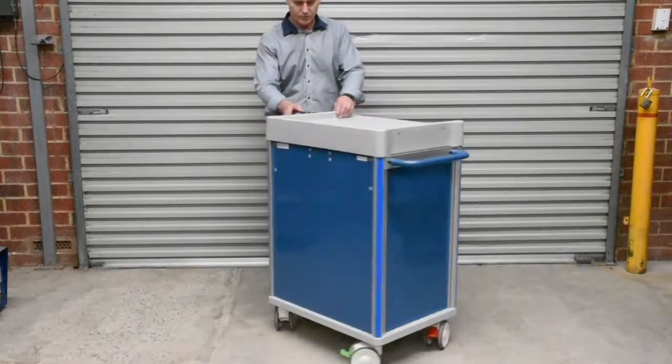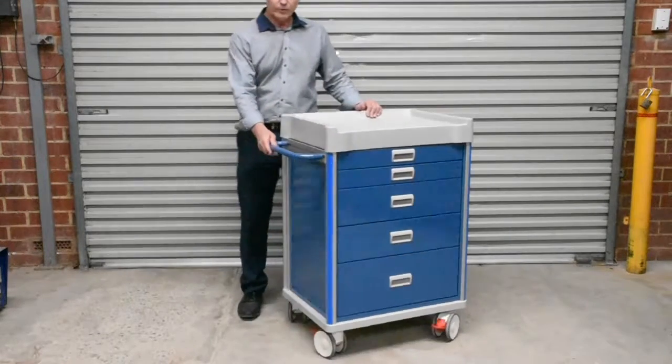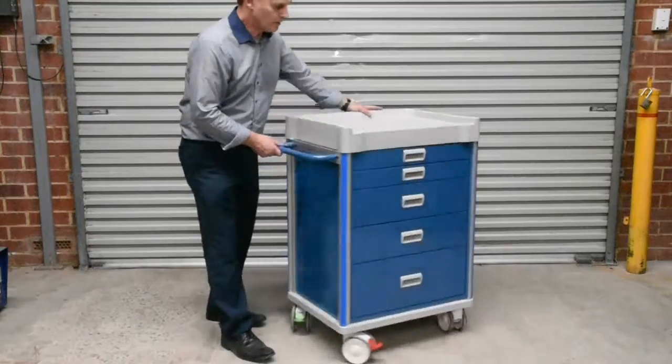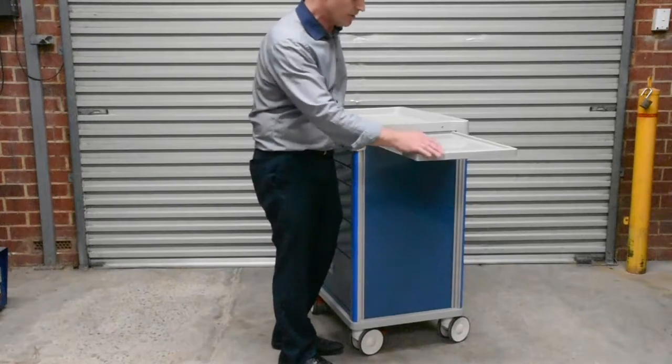Give it a spin — let's see what it looks like. It's quite well on its wheels. It comes standard with a push handle here, which you fit yourself. There's also a pop-out shelf. Maximum capacity is five kilograms.